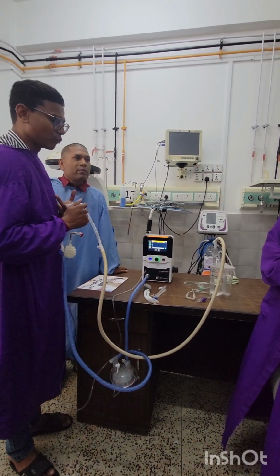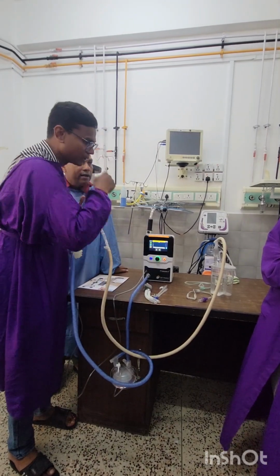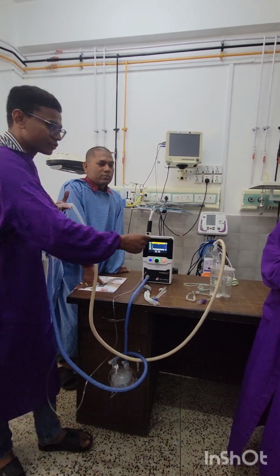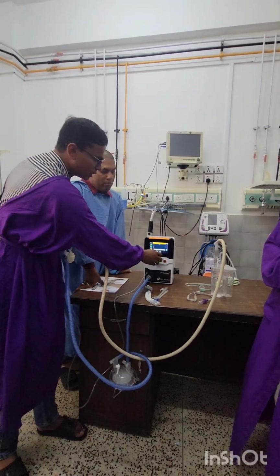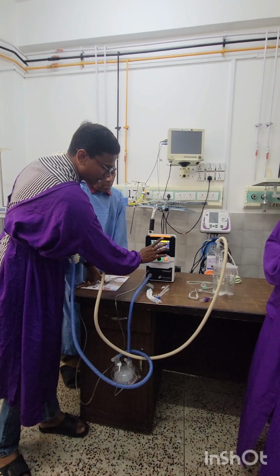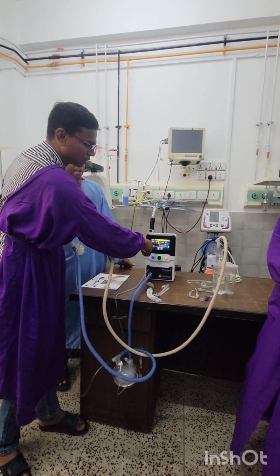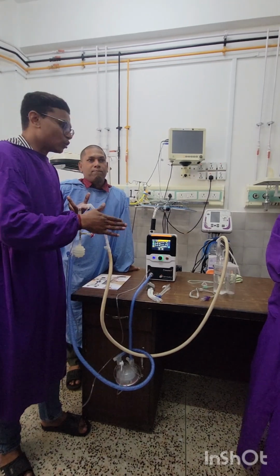One more thing we have incorporated in the bubble CPAP is the alarm limits. For example, if you don't want your baby's CPAP pressure to go beyond 8 cm H2O, 9 cm H2O, or 7 cm H2O. So what will you do? If suddenly this stick falls into the water, what will happen? Immediately a pressure rise will occur. So we have provided an alarm setup in this device. For example, 8 is the maximum pressure and 3 is the minimum pressure. Whenever the circuit pressure or CPAP pressure goes below 3, it will give you an airway pressure low alarm. So you can know that the pressure is below your alarm limits.